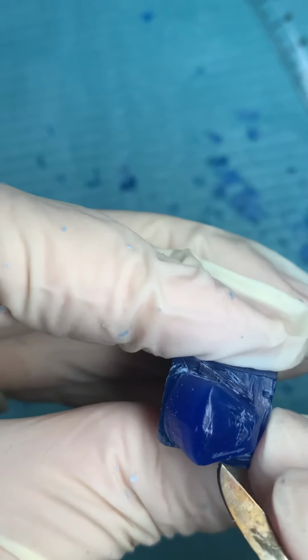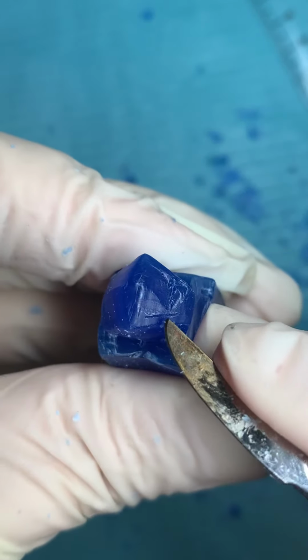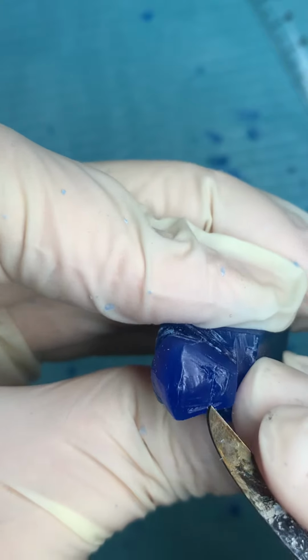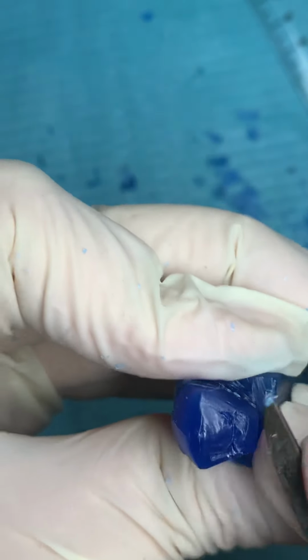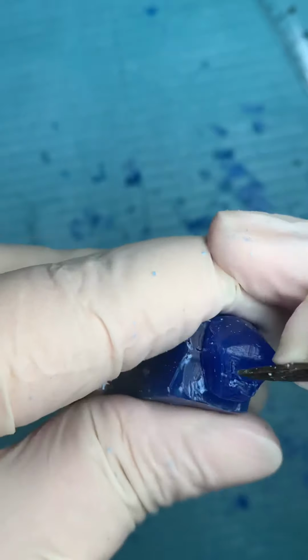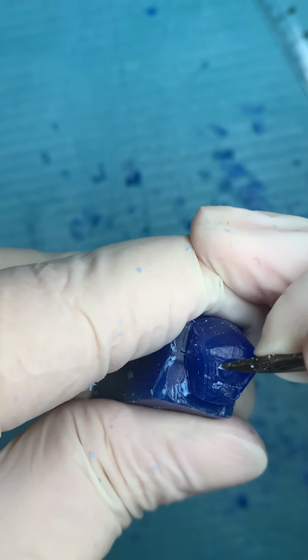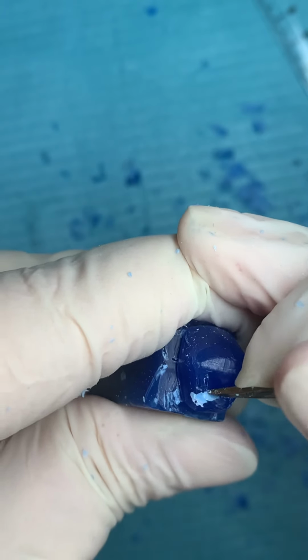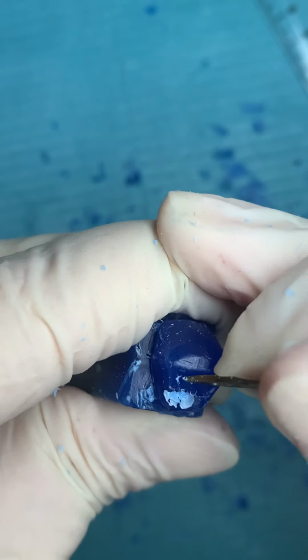The other side again, here my marginal ridge, and intersection with the central groove, go here at this area and go another groove here for the fossa. Then try to make by the tip of the carver here accentuation of the marginal ridge and carving for the cusp here.